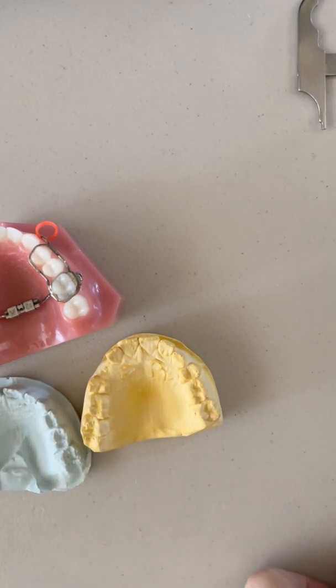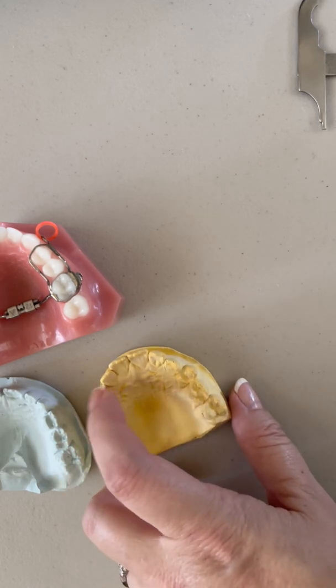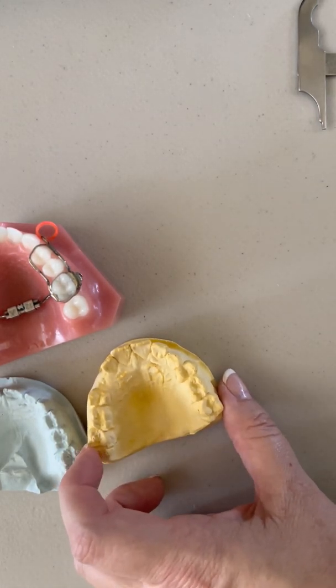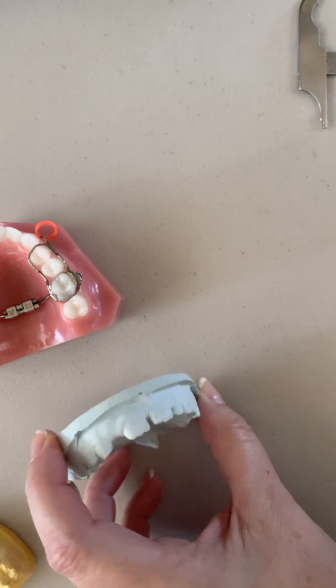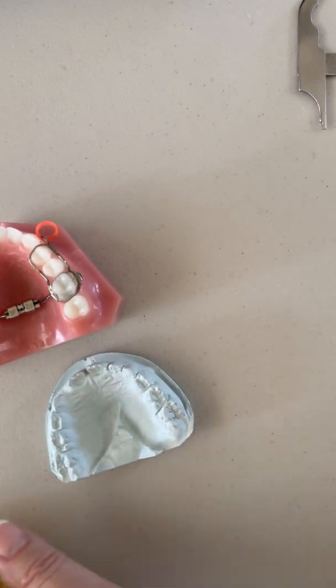Other things to look at: the anatomy of the palate — I don't want to see anything vaulted or V-shaped. The shape of the arch matters, and we also look at general space — do we have space to line up all the teeth? In this situation, maybe a millimeter space deficient here, a millimeter deficient there, but there's some space gained when the E's are lost. I'd call this just about even. He ended up needing only eruption guidance appliances and about four aligners. The other case — after expansion — has plenty of space once those gaps close, with extra E-space on top of that.